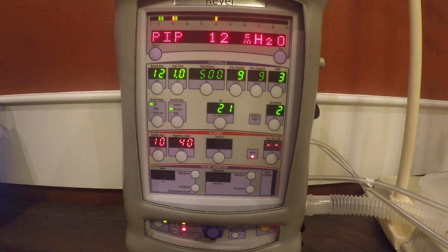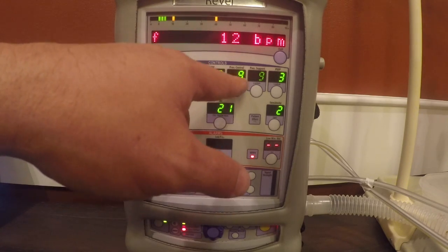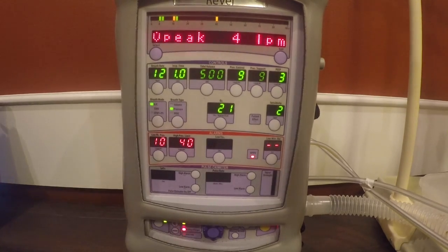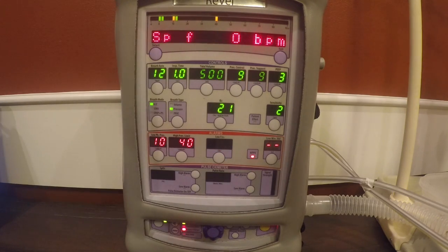Because we set that spontaneous rate that will actually augment the patient's own respiratory rate, you can see that our pressure control knob or button is actually lit up. And so that's what's actually driving the patient's augmented breaths based on that respiratory rate that you set on the initial startup. You can also see that it's actually blinking. And so there are some recommendations based on CareFusion that we should set the ventilator up based on standard parameters for every BiPAP patient. And you can identify the need by looking at the pressure control button.